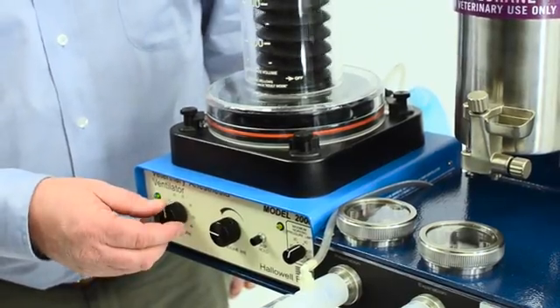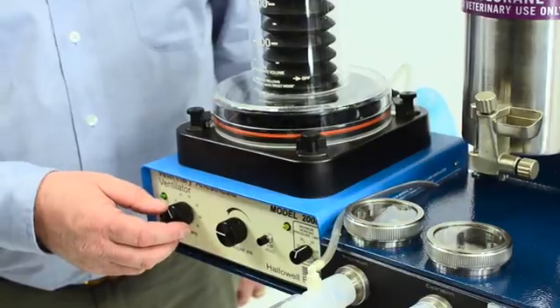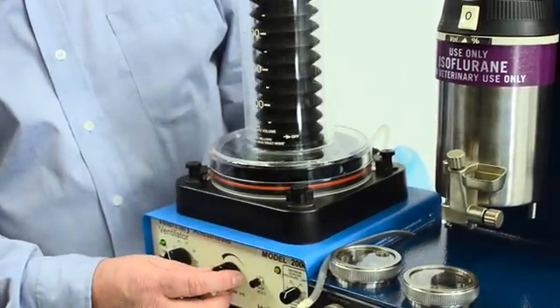This is the breath rate adjustment if you want to have less breaths per minute. This is our tidal volume adjustment.